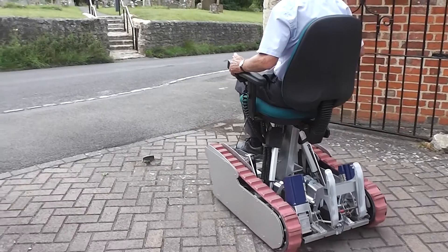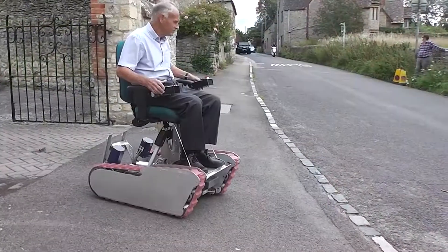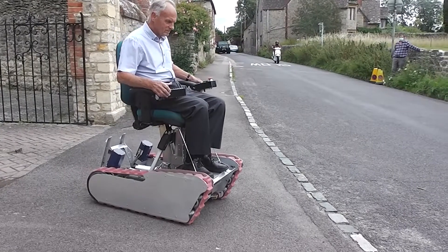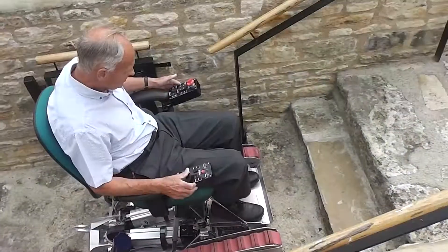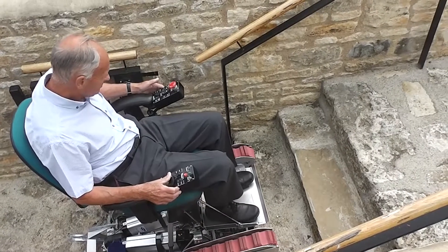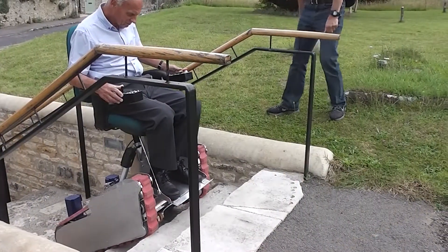This is the IGAM Mobility Vehicle, or MV. Here it's taking an elderly or infirm passenger to church. It crosses the road and begins ascent of a double flight of stone steps. Throughout, the passenger is maintained in a vertical position and always faces the direction of travel.